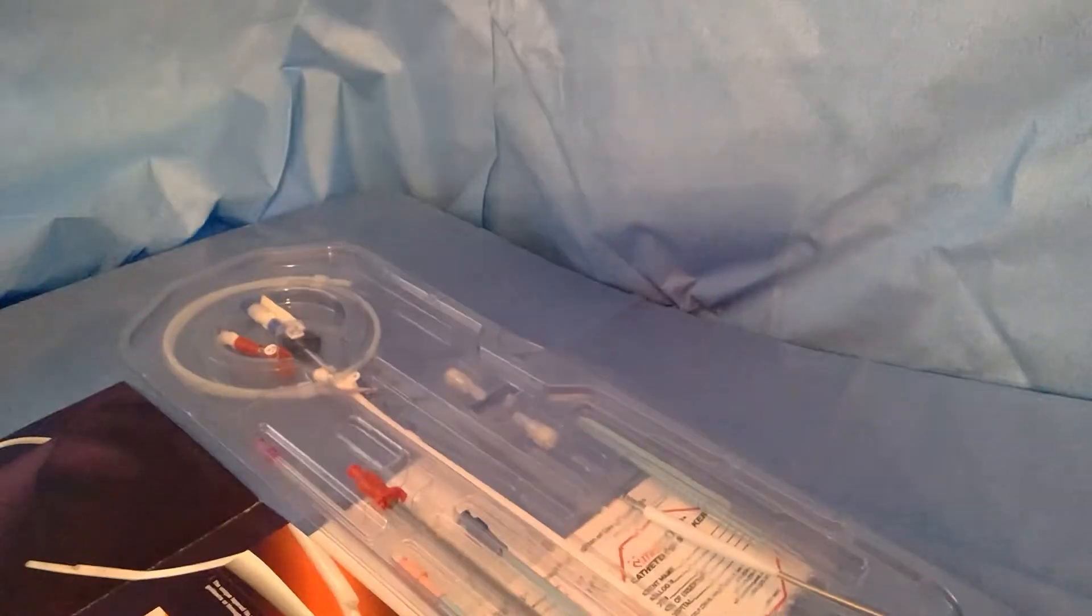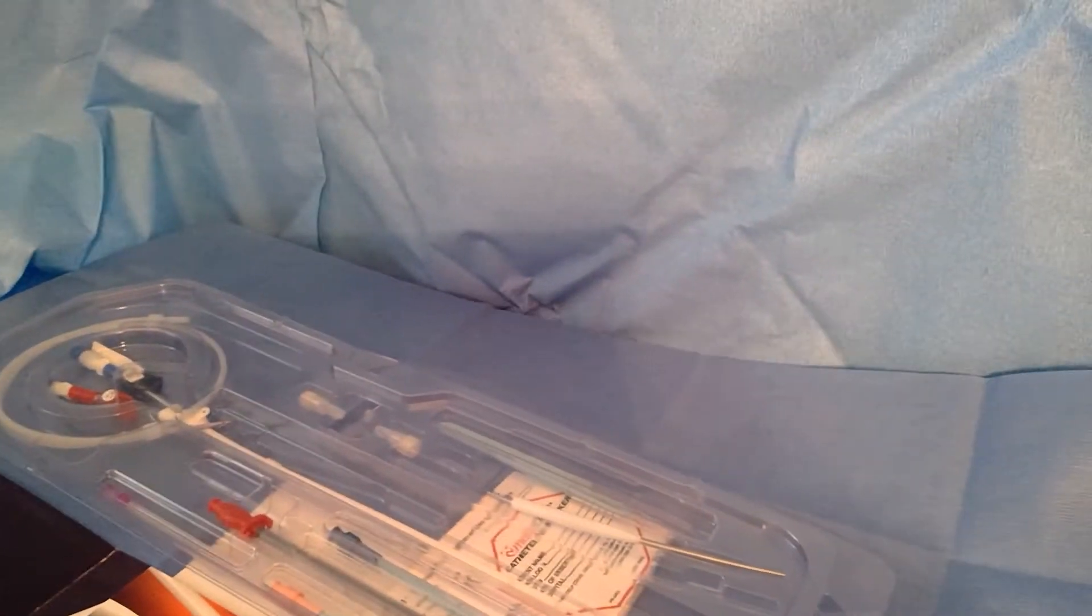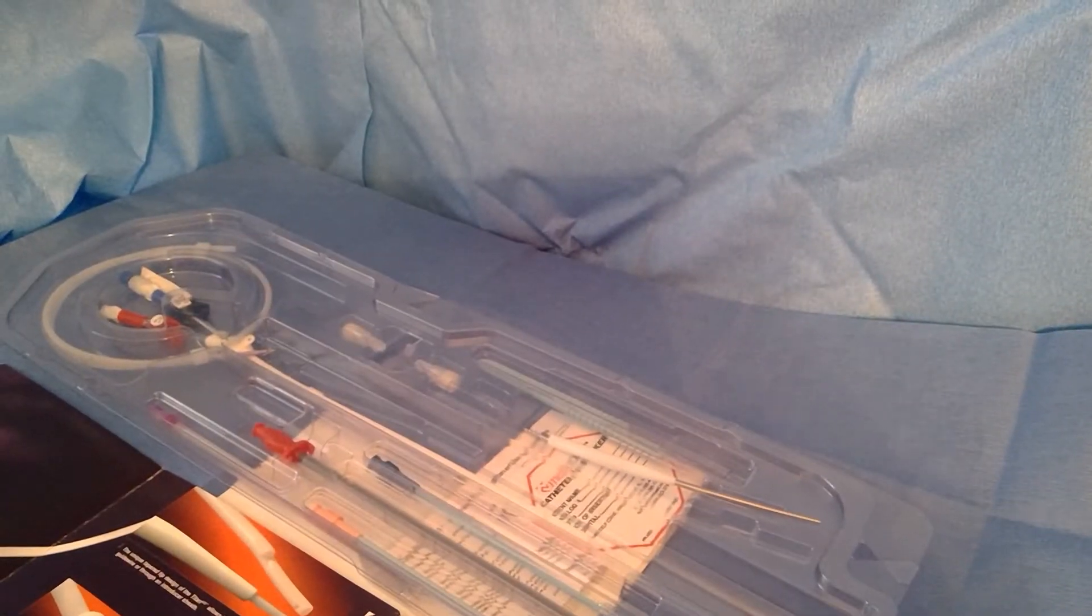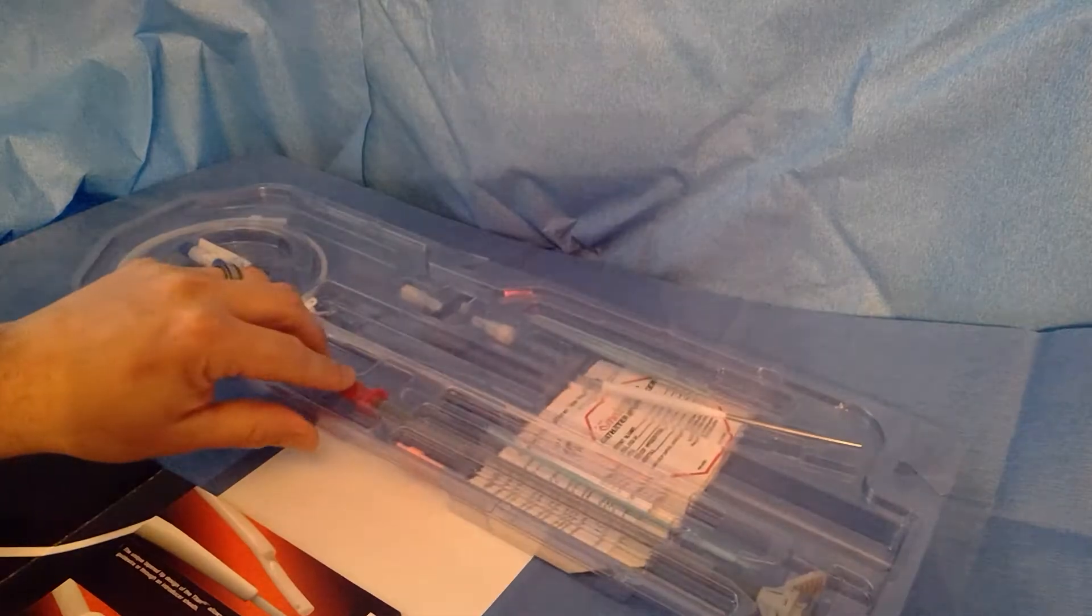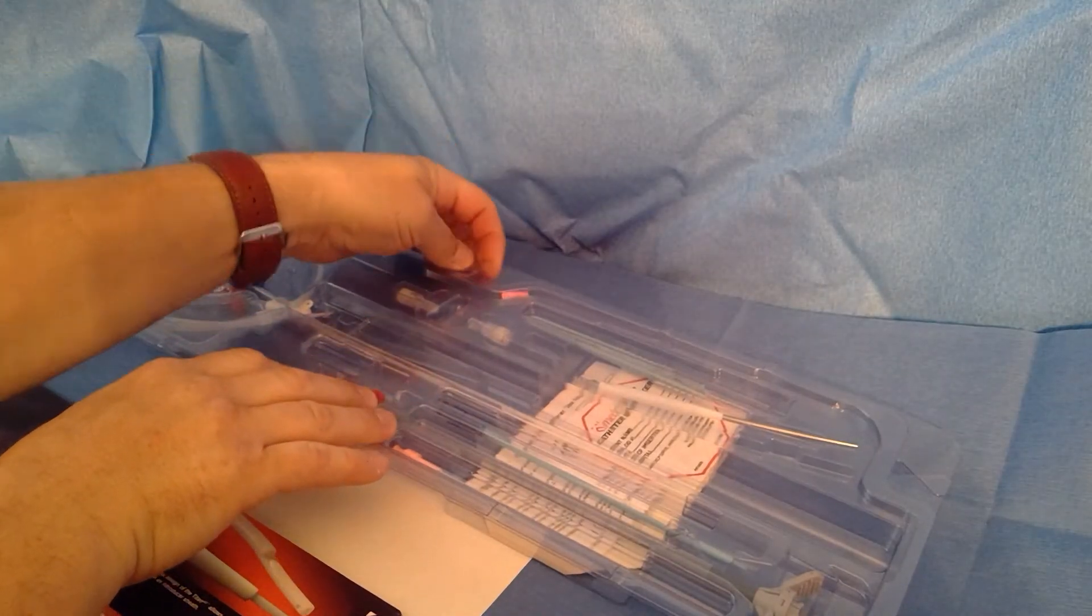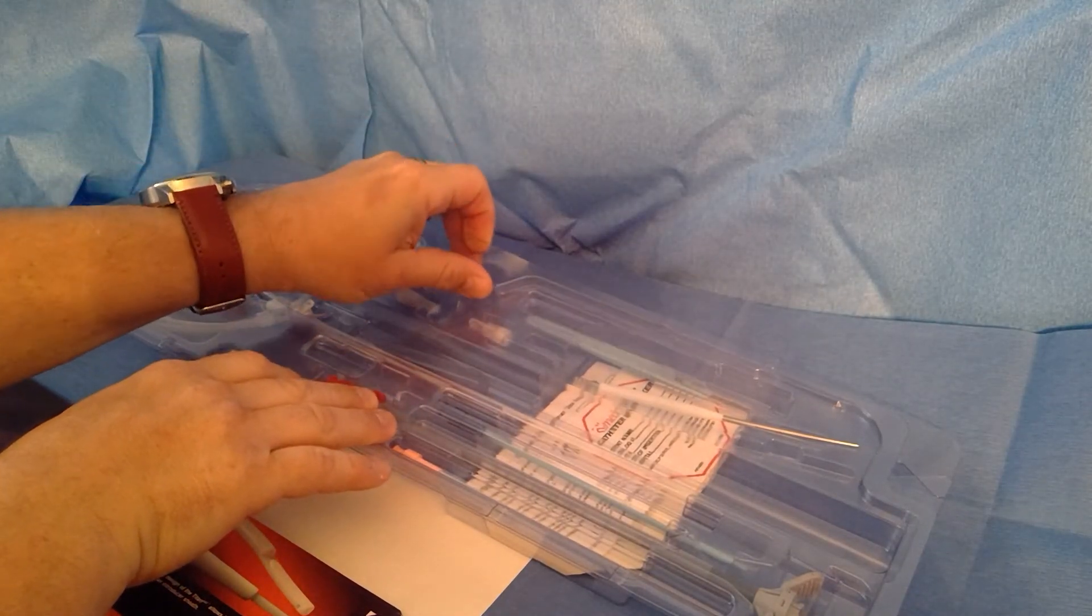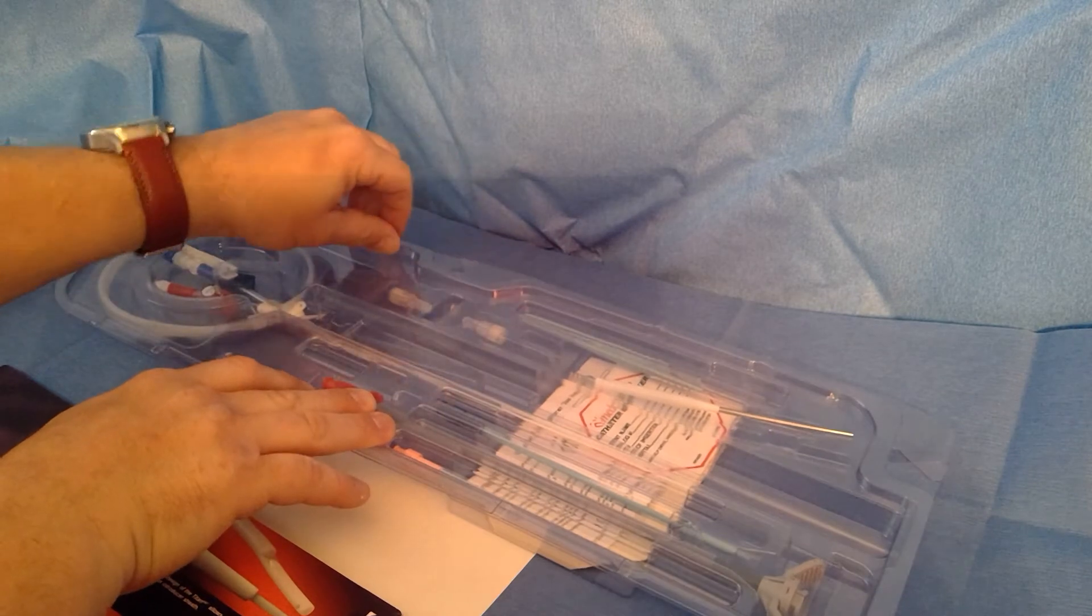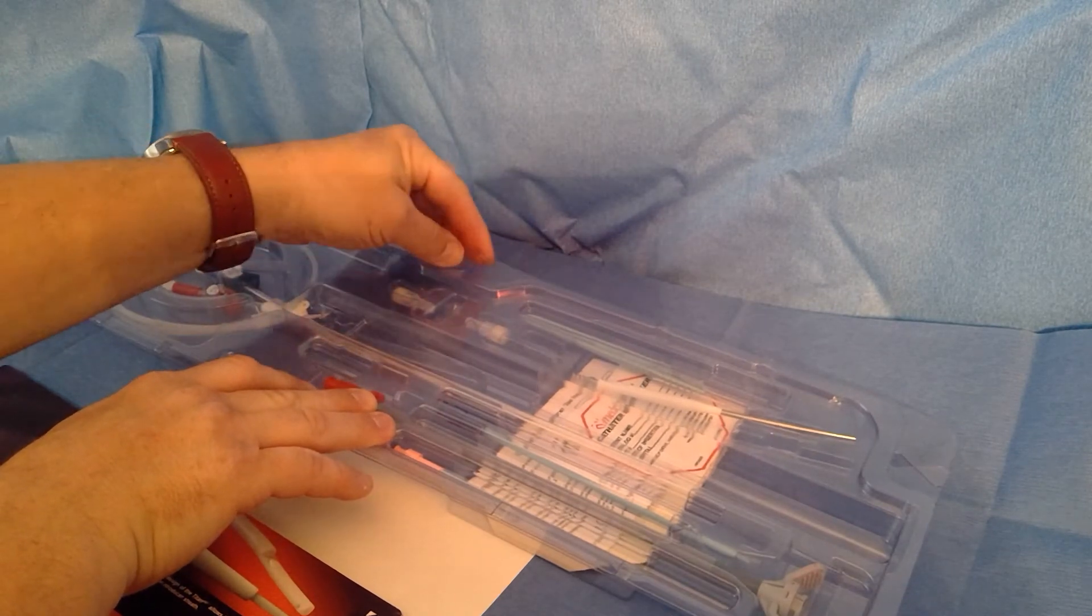I wanted to go over the kit with everyone so they can see what it actually looks like, in case they're forced to use one during this COVID situation. A lot of docs are having to use products they're not that familiar with because they use whatever they can get in their inventory.